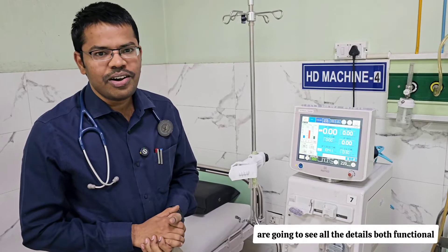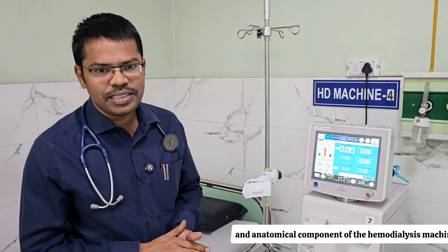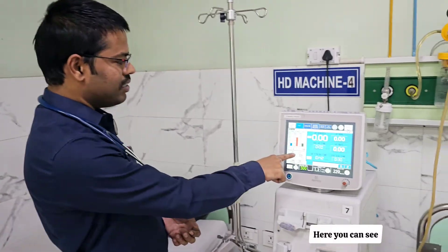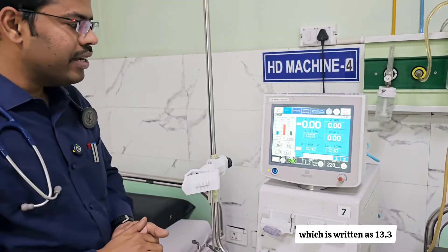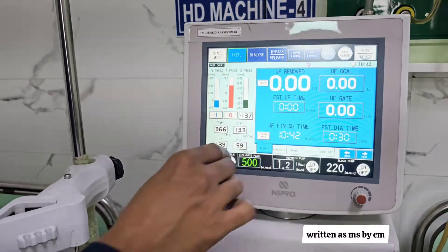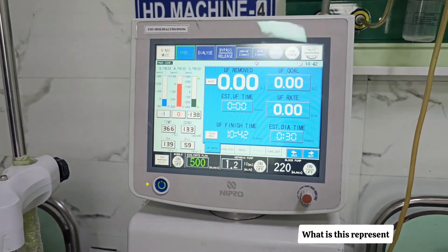In this complete hemodialysis series, we will see all the details — both functional and anatomical components of the hemodialysis machine. Today we are going to look at an important aspect: conductivity. Here you can see a reading of 13.3, with the unit written as mS/cm (milliSiemens per centimeter). What does this conductivity represent?